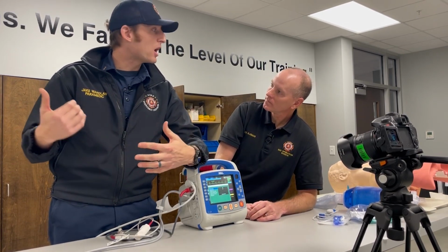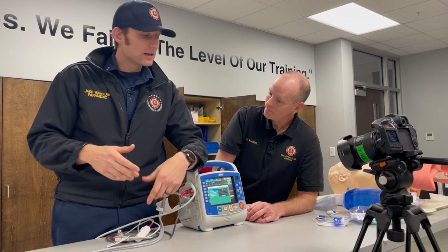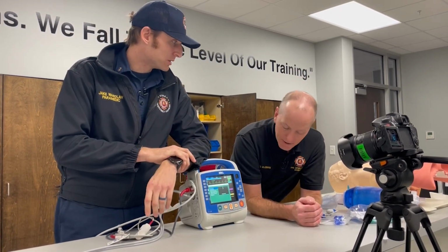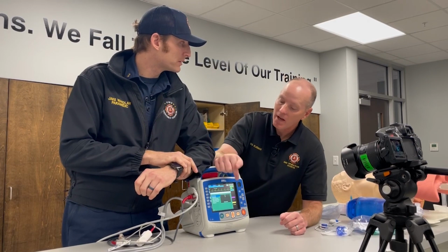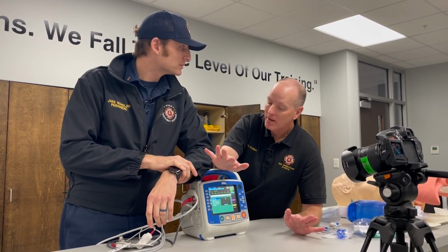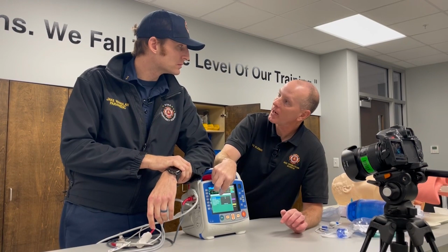When you actually contact the hospital and you're transmitting, that's where further information may be required. That's where names may need to be input. I will tell you, this monitor can be a little bit of a booger bear. It can be difficult. And this is why, especially at the BLS level, we need one of you all to take your time and put in that last name and sex. Hey, don't worry about the age at this moment in time, because this monitor will base a lot of stuff off sex, and that alone will change the parameters to get you there.